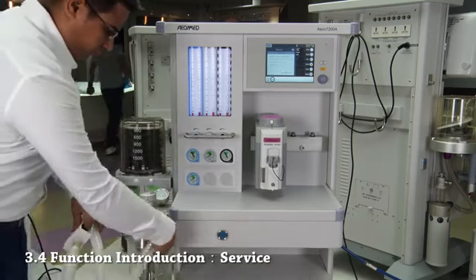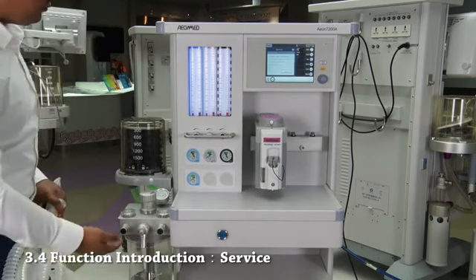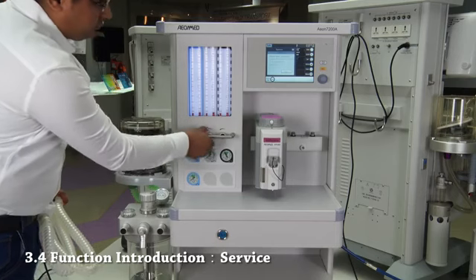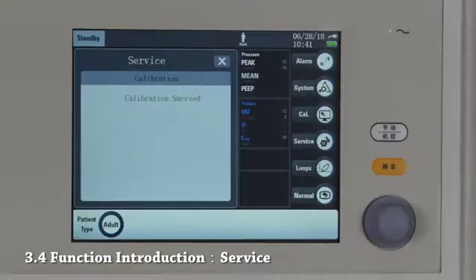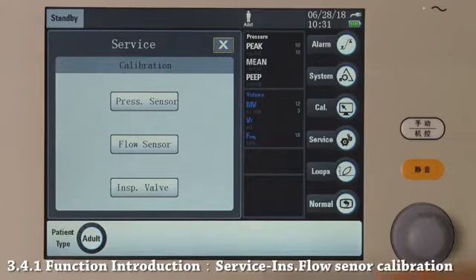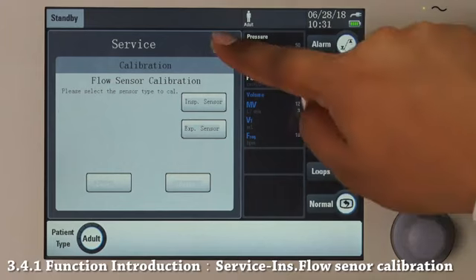First, disconnect any hoses from the inspiratory and expiratory ports. Set all flow meters to 0 liters per minute. Press start. Succeed. In flow sensor calibration, we can choose to calibrate inspiratory flow sensor and expiratory flow sensor.